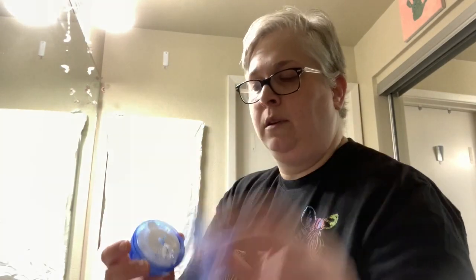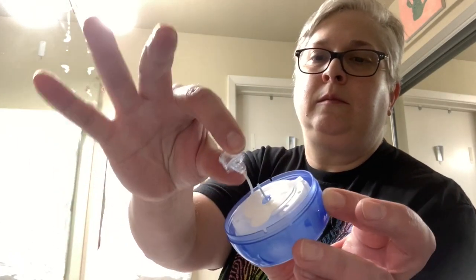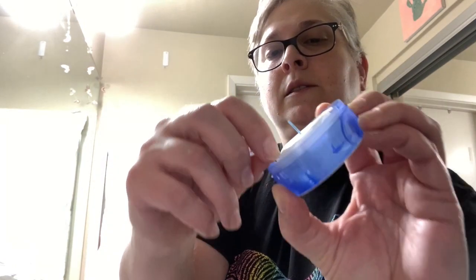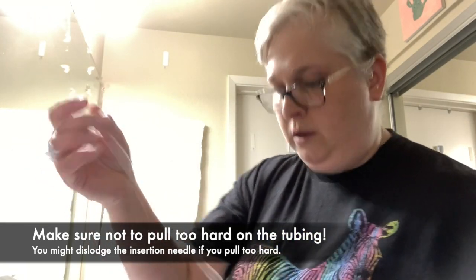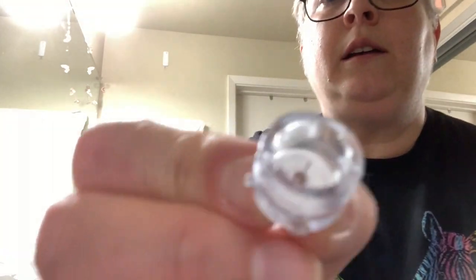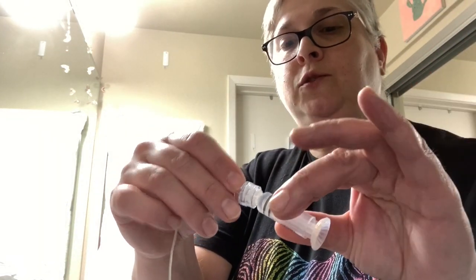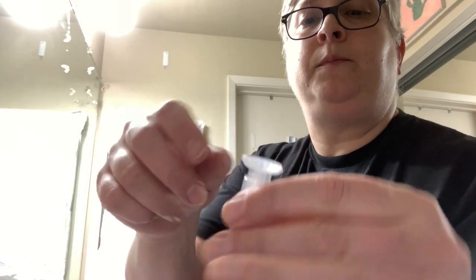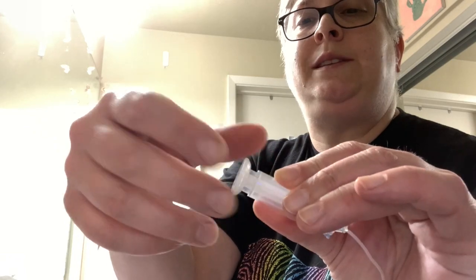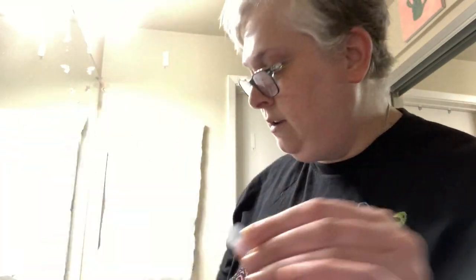So I'm going to open up this little package — plastic off — and there are all sorts of neat things in here. I'm going to pry open the top, and inside is the piece we're going to attach to our reservoir. You have to unwind it and unhook it. See, it's also got a little needle in there. I'm going to stick this into the top here — it just twists on. There you go, twist it on. Now this bottom part can come out. It's kind of ingenious — you twist this, ta-da, all done.